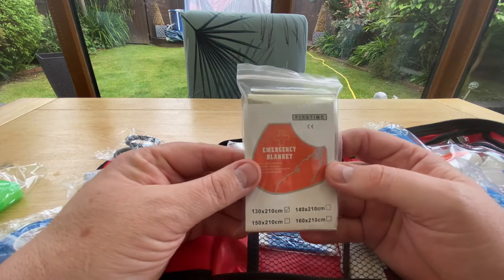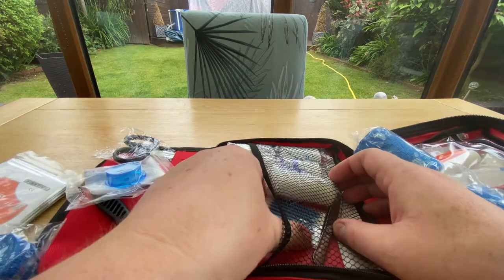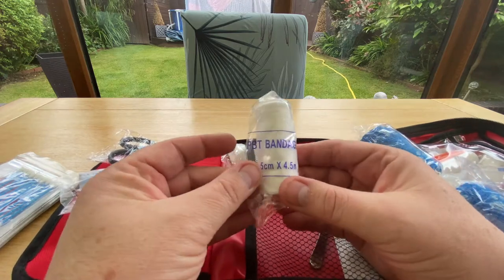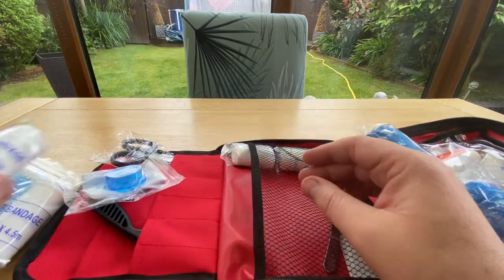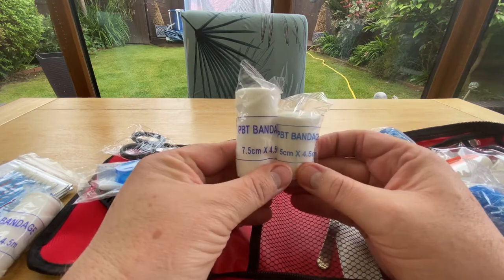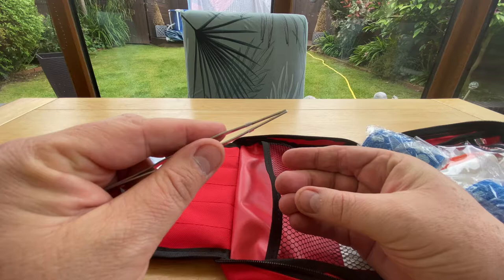There's an emergency blanket — that's good for anyone, human, dog, cat, or any pet. It's actually got a person on the front so it could be used for anyone really. There are some cotton buds — not sure what you'd use those for, maybe getting something out of their eyes or any eventuality. There are also some PBT bandages. I'm not sure what PBT stands for but I'll look that up. There are three of them: one is 5cm by 4.5 metres and another is 7.5cm by 4.5 metres — same length, just a bit wider.